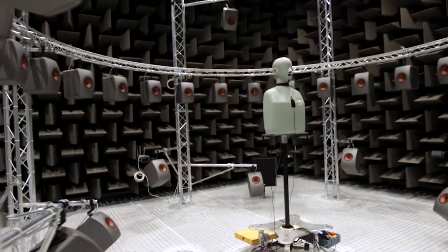ReSound can address mild hearing loss all the way up to severe or profound. Just like most prescription hearing aid brands, pricing varies by local market, typically between $3,000 and $6,000. ReSound is a Danish company based in Copenhagen and is the fourth largest maker of hearing aids in the world — a very respected company with decades of history. It was actually the first prescription hearing aid I ever wore, so I always have a soft spot for this brand.